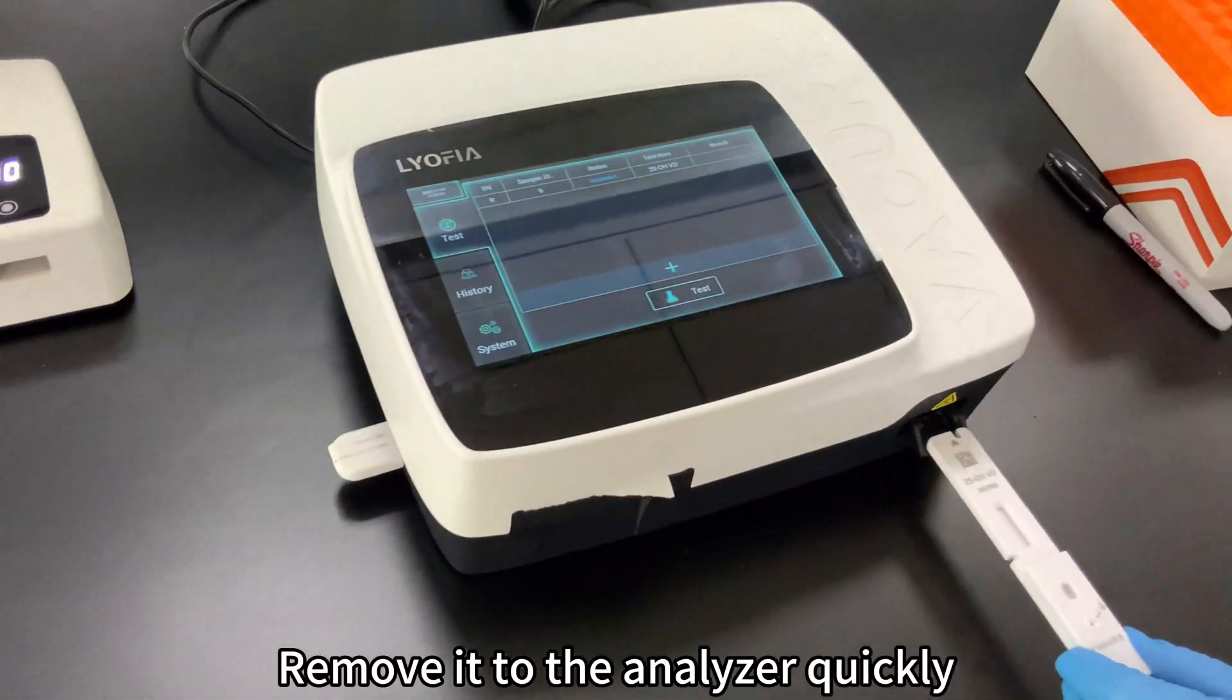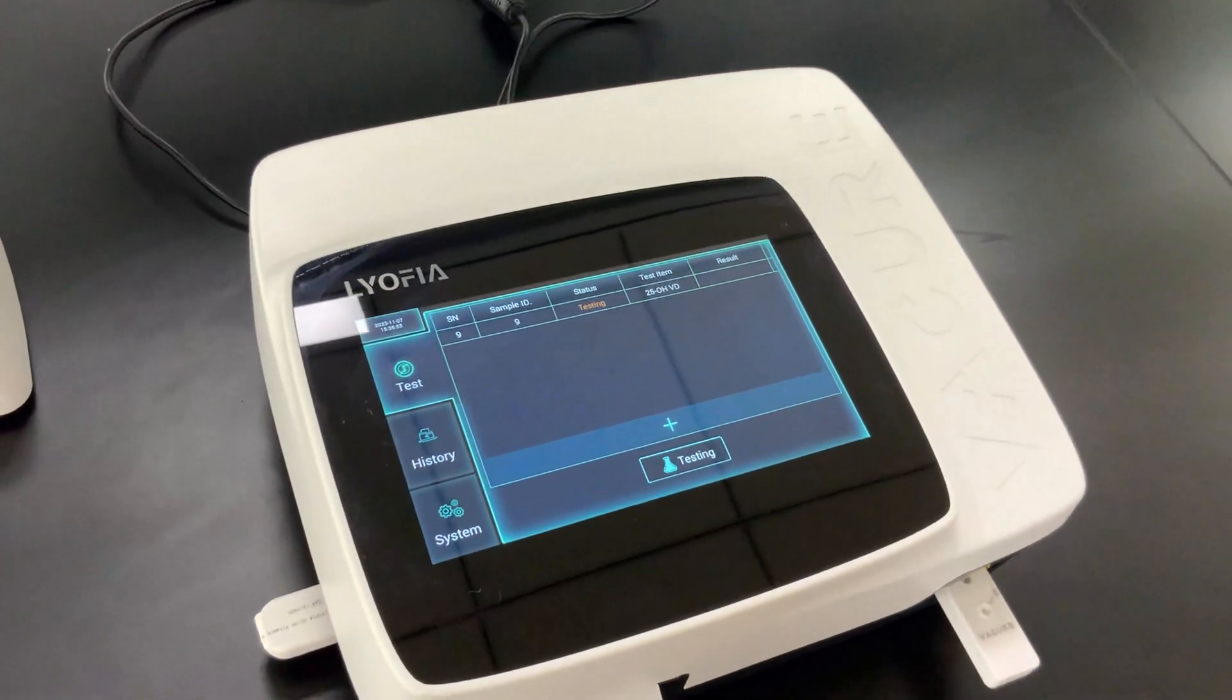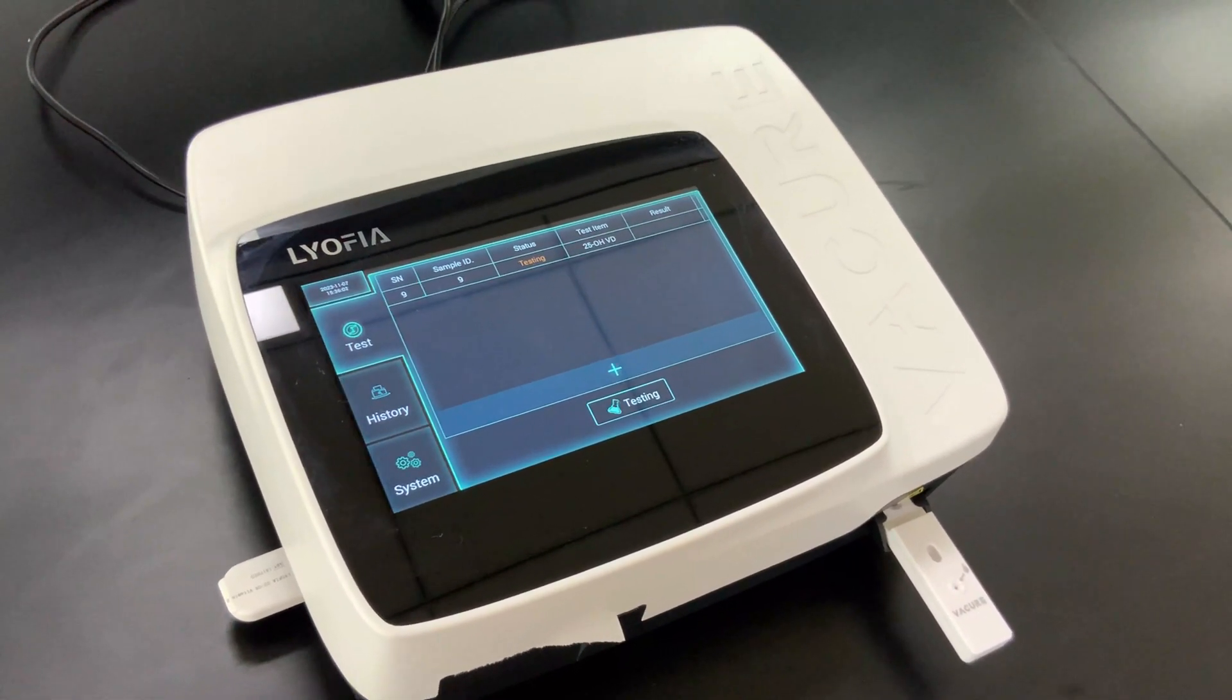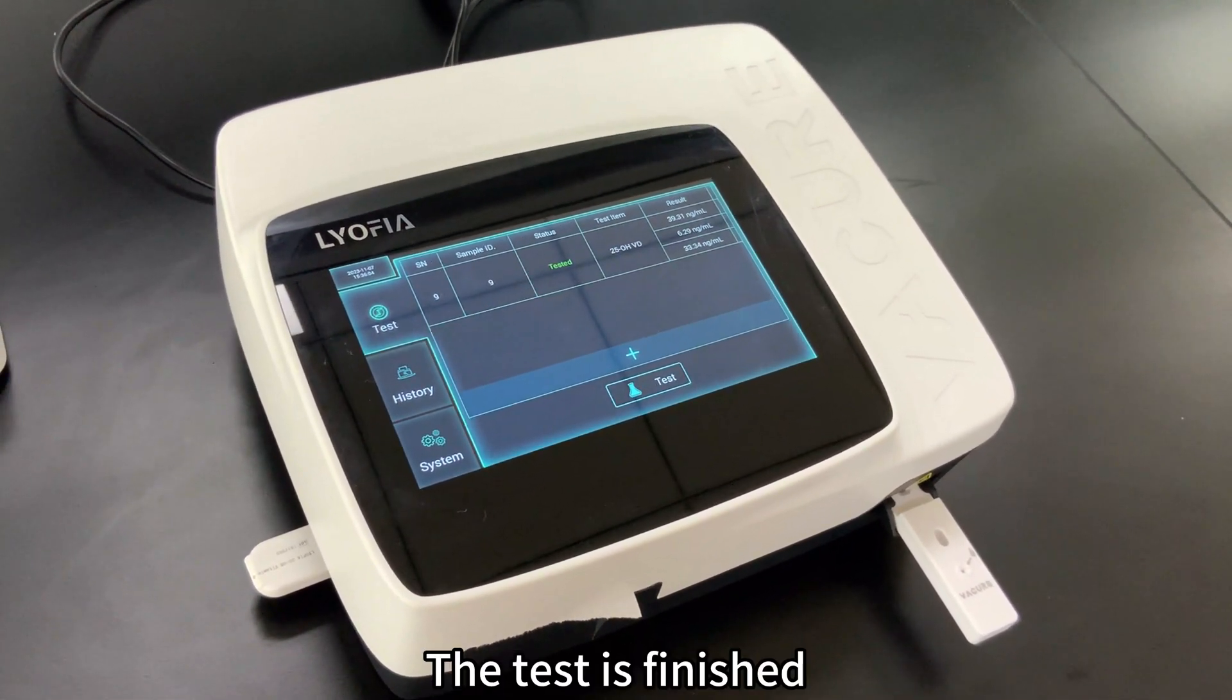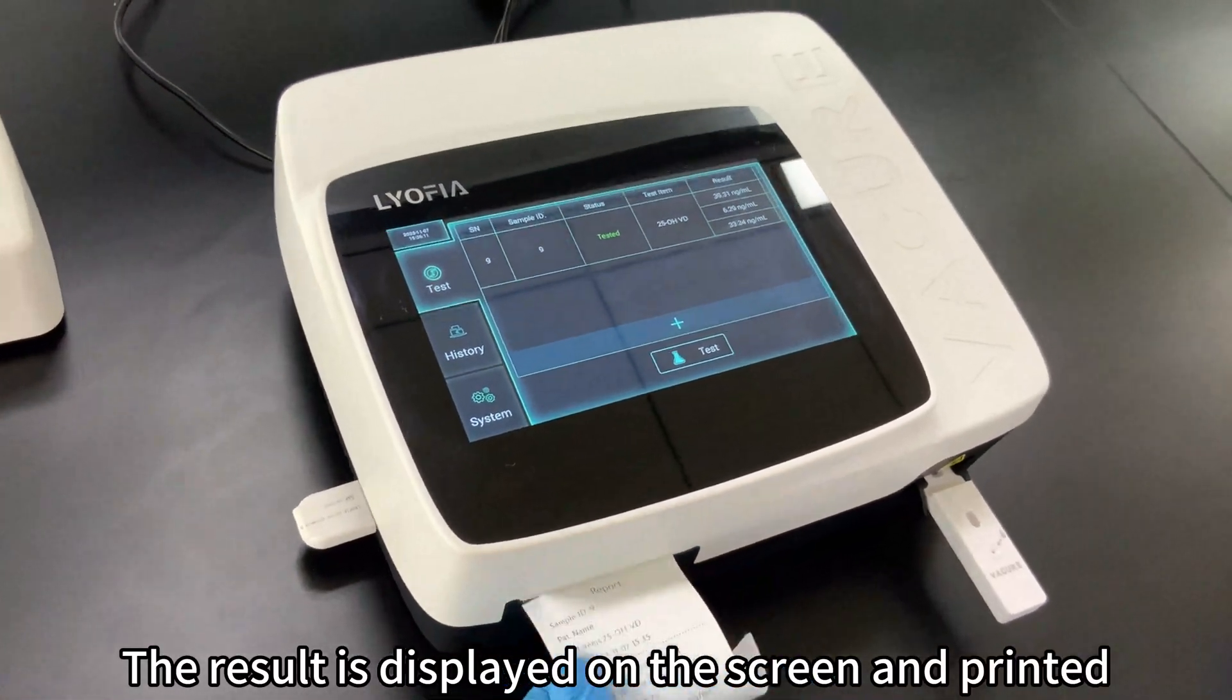Remove it to the analyzer quickly and click Test. The test is finished. The result is displayed on the screen and printed.